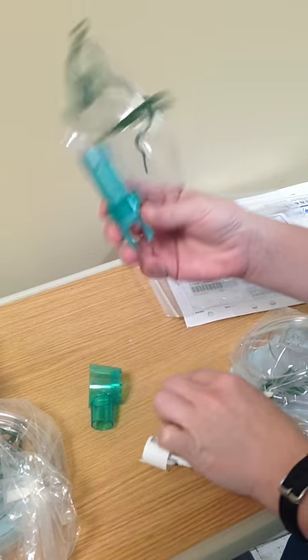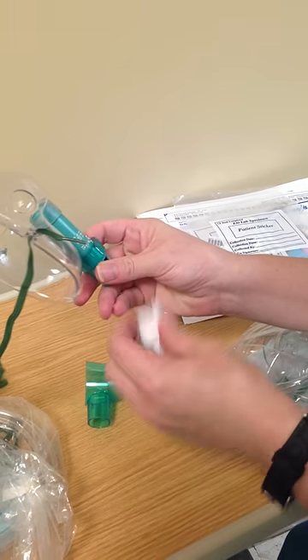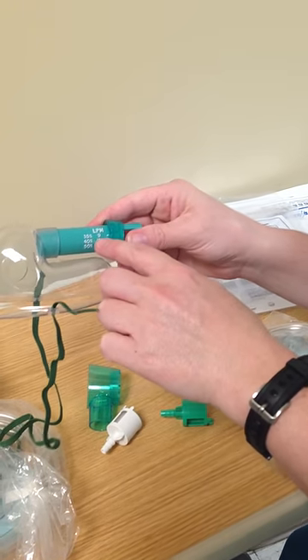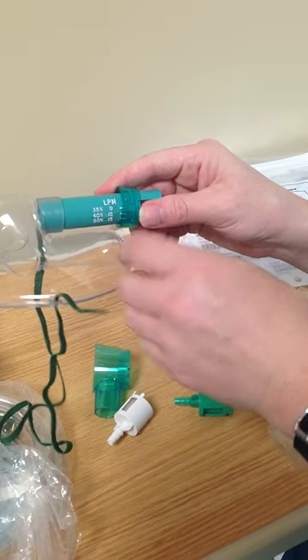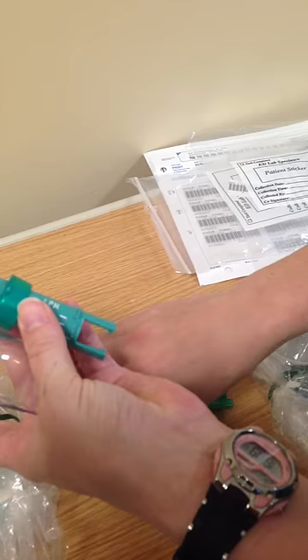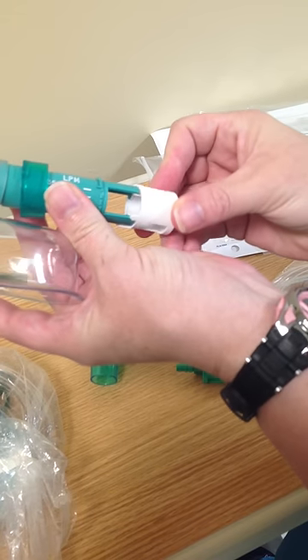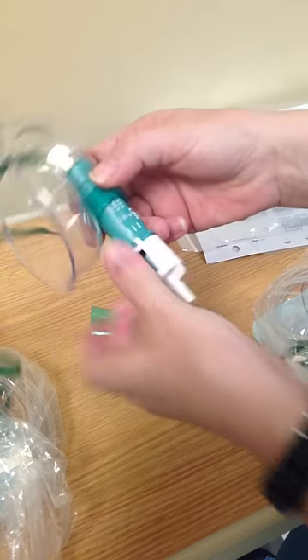The green follows the green. The white follows the white. The FiO2 gives you a percentage to the oxygen liters per minute. When you use the white, the white has an arrow here. You put it on like this and you hear a little click.